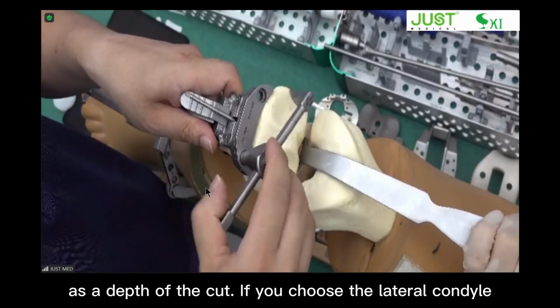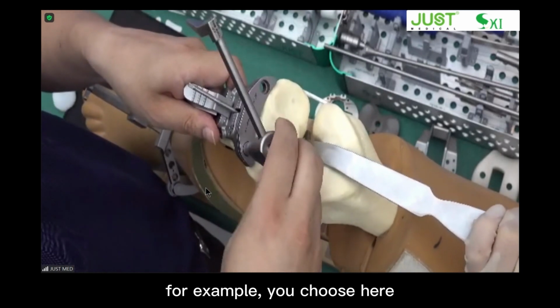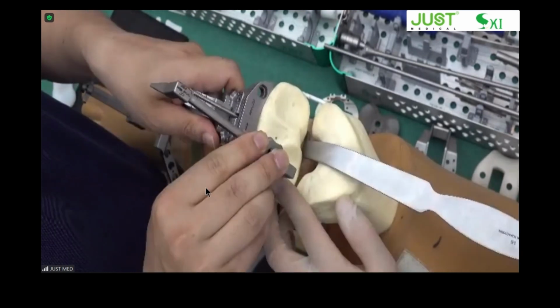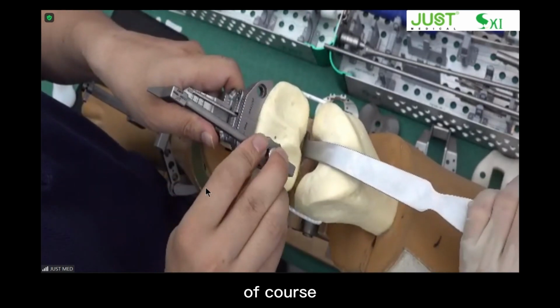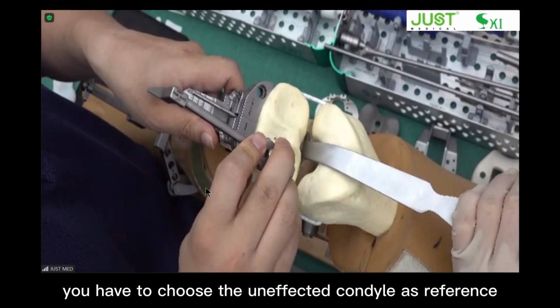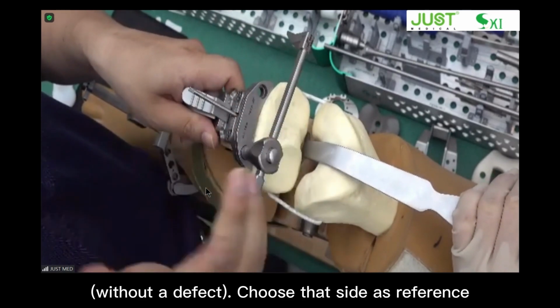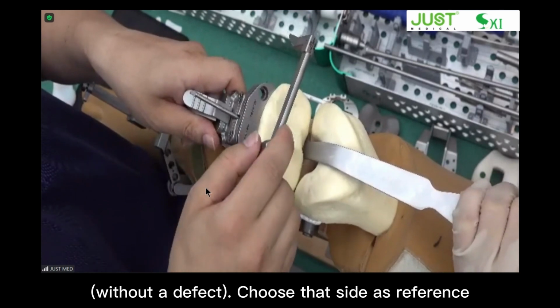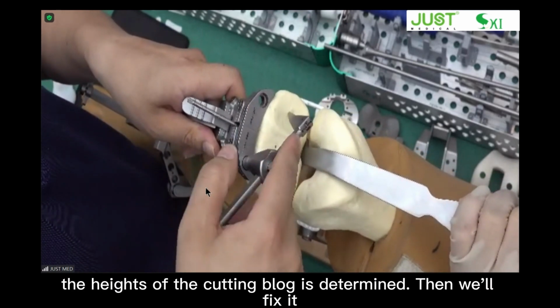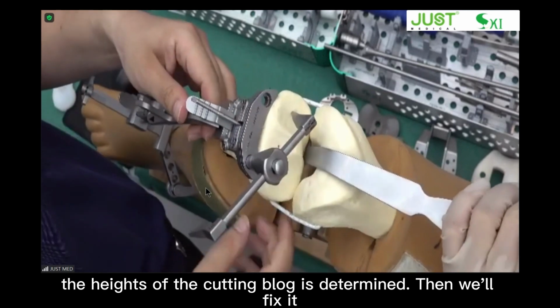If you choose the lateral condyle, for example, you choose here, you need to use a 10 to determine its height. Of course, you have to choose the unaffected condyle as reference. Without a defect, choose that side as reference. Then the height of the cutting block is determined. Then we fix it.